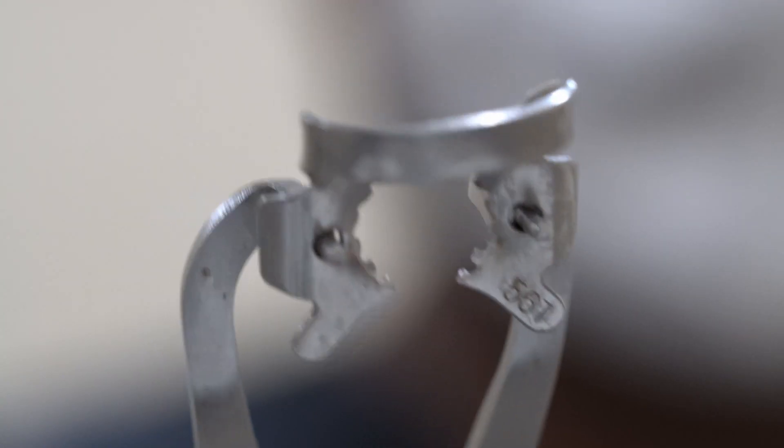The first component of any rubber dam set are the clamps. Previously I would have suggested three clamps in my earlier video, but now that is kind of outdated. I don't use those three clamps anymore.